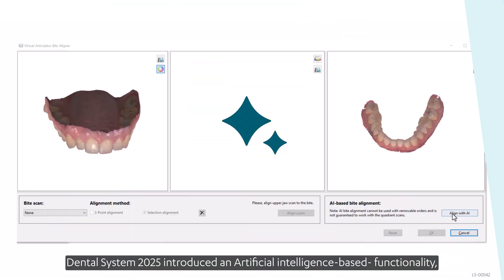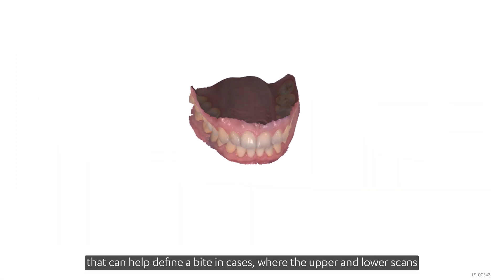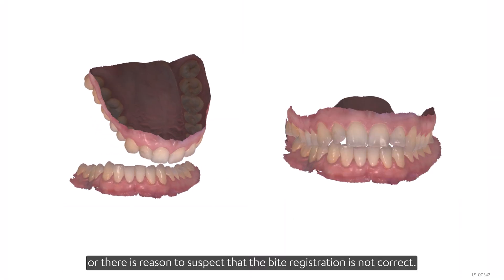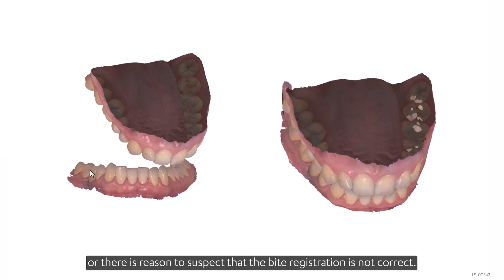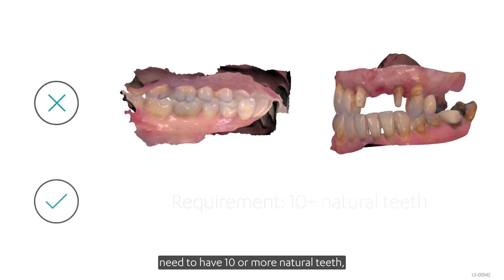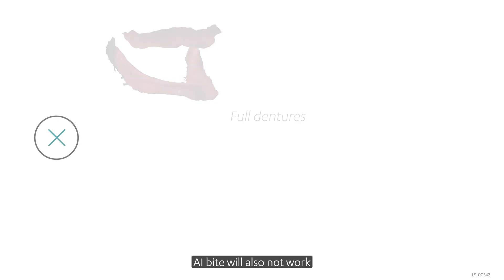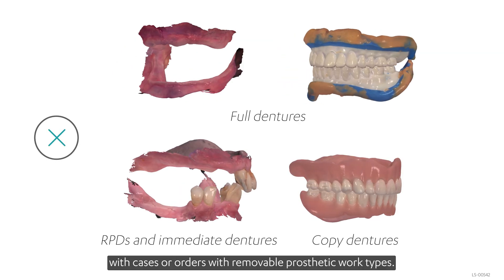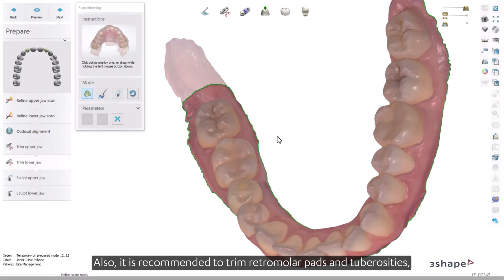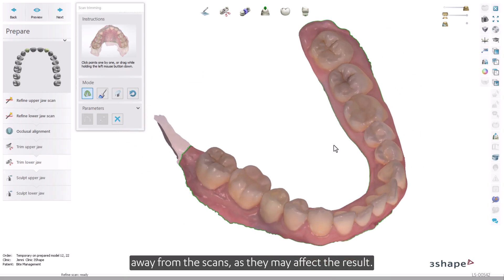Dental System 2025 introduced an artificial intelligence-based functionality that can help define a bite in cases where the upper and lower scans have been received in Dental System, for instance without a bite registration, or where there is reason to suspect that the bite registration is not correct. For AI-Bite to work, both upper and lower jaw scans need to have 10 or more natural teeth, which rules out quadrant or small segment scans. AI-Bite will also not work with removable prosthetic work types. It is also recommended to trim retromolar pads and tuberosities that cause the upper and lower jaw scans to intersect, as they may affect the result.